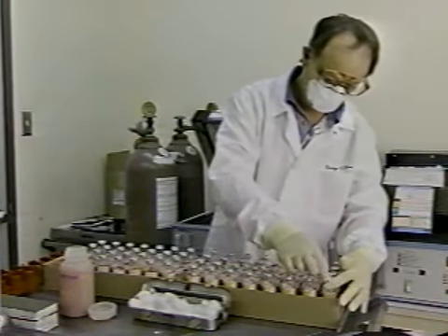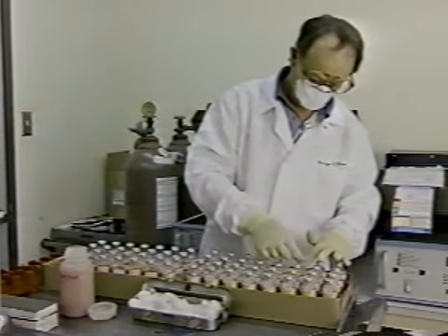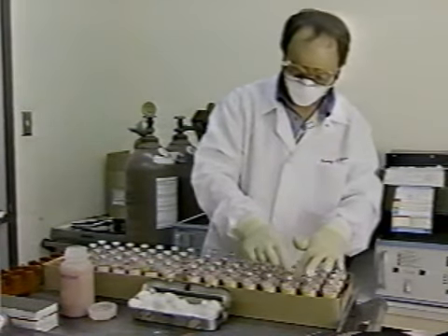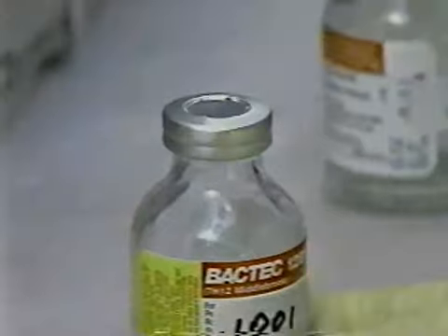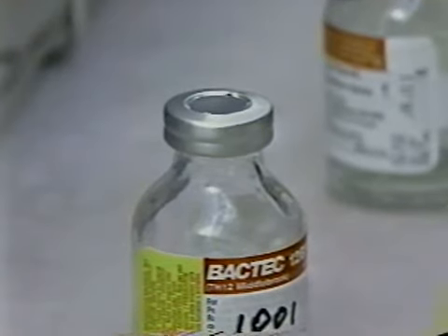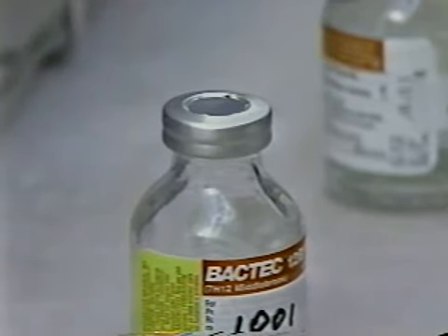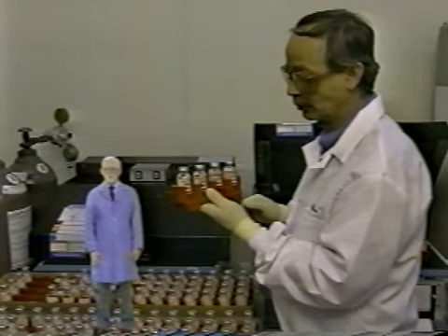70% alcohol used as a second wipe of the septum has additional antimycobacterial action, but works here primarily to remove the more sticky residue of the first disinfectant. The small residue of 70% alcohol evaporates quickly, leaving a clean septum. Do you know of anything else that might help our viewers detect or prevent false positives?